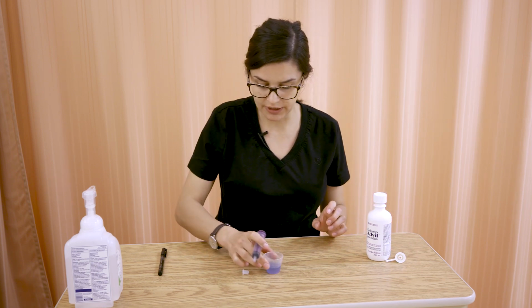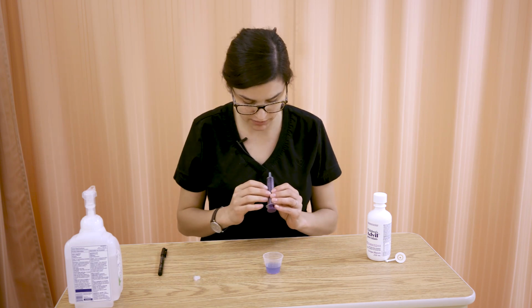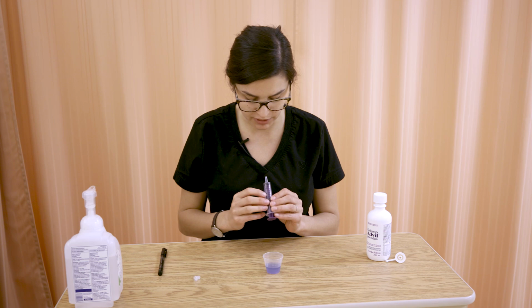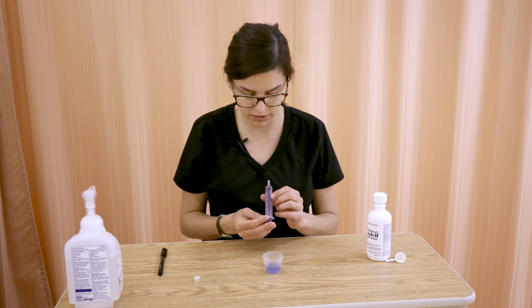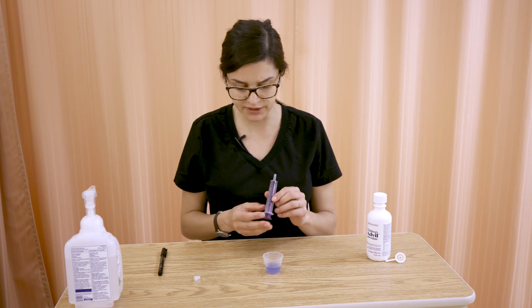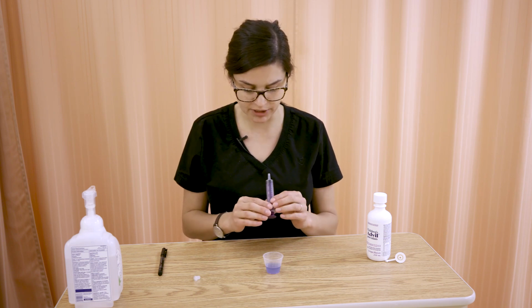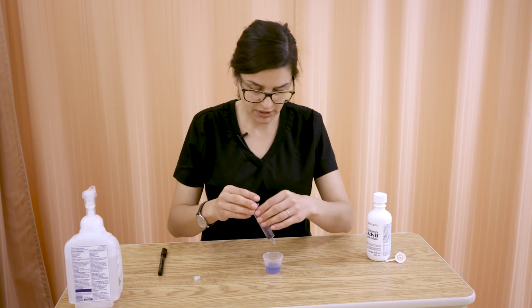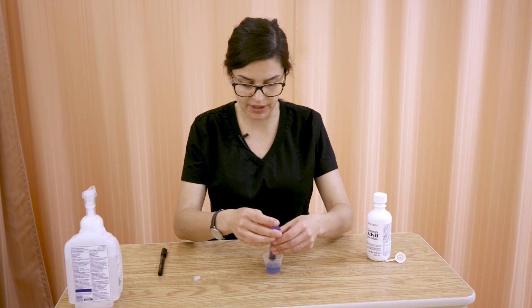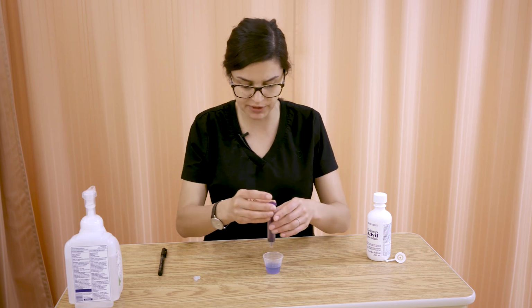So we'll go over now how to draw up. Say we want 5 mLs. We want to find that 5 mL volume marking. Get familiar with your oral syringe as well. Every syringe is calibrated a little bit differently, so you want to make sure you look at the calibration and what it's going up by in terms of its measurements. This one goes up by 0.2 for each small dot in between the whole numbers.